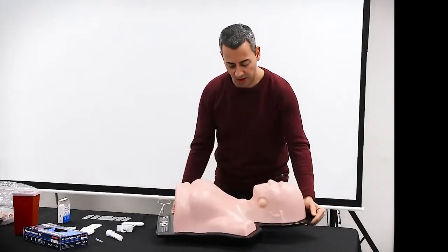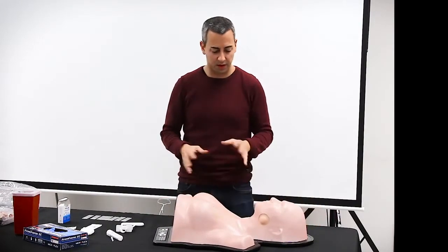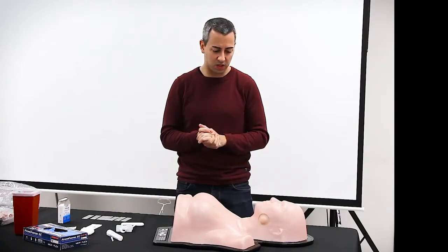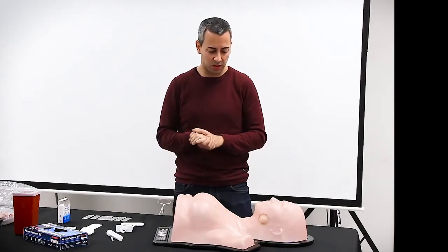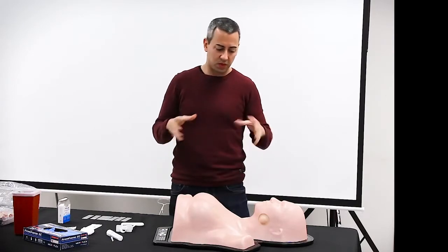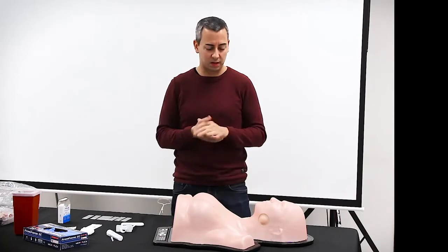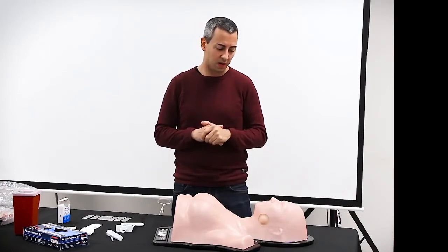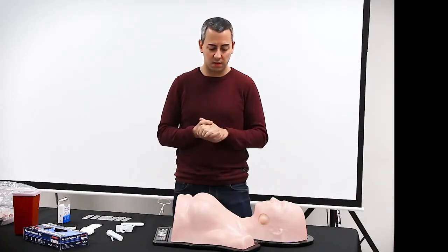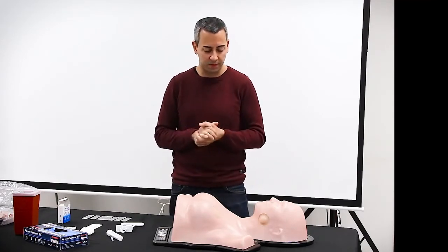This simulator, FioNA, allows us to learn almost everything included in this procedure. There's always an instructor with you, who is going to act like an actor. So you can ask a few things about treatment, anticoagulant therapy.